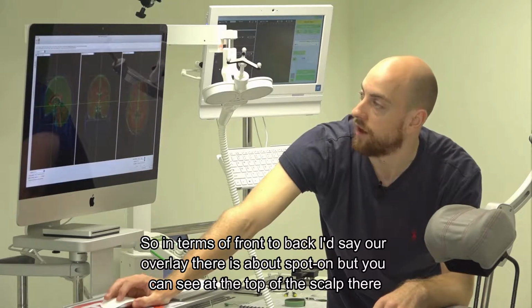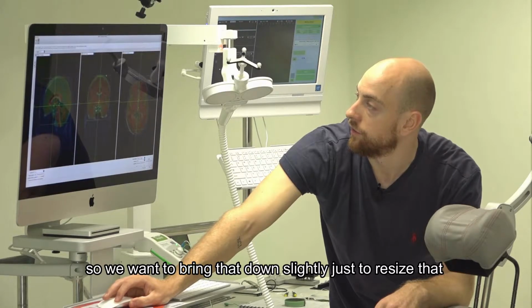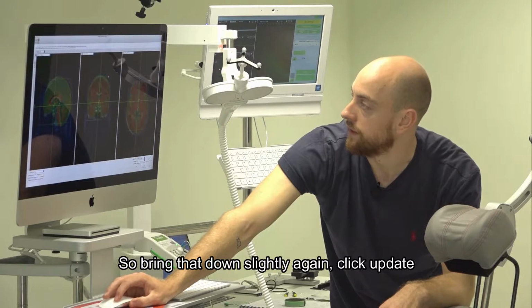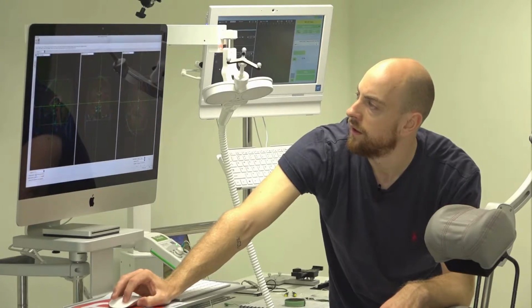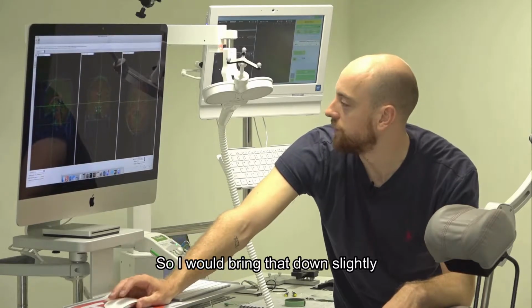But you can see at the top of the scalp, we're protruding a little bit more than we want to be. So we want to bring that down ever so slightly, just to resize that. Again, click update. We've still got a little bit of a protrusion there, so bring that down slightly again. Click update, and just turn that opacity down. I'd still say this section of the scalp is a little bit too large, so I would bring that down ever so slightly.